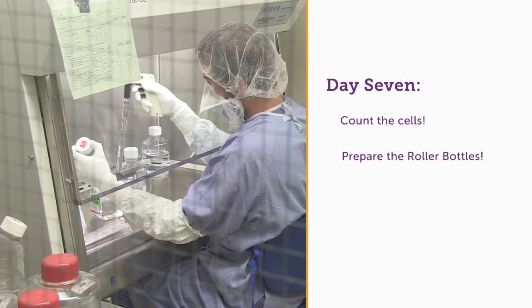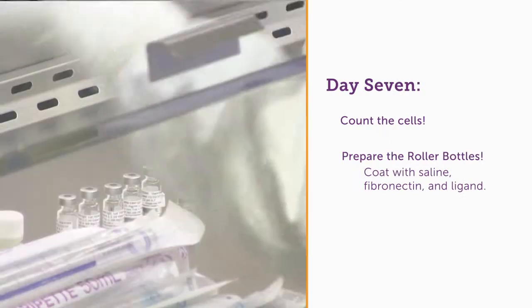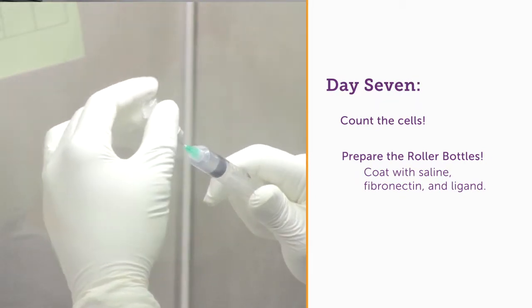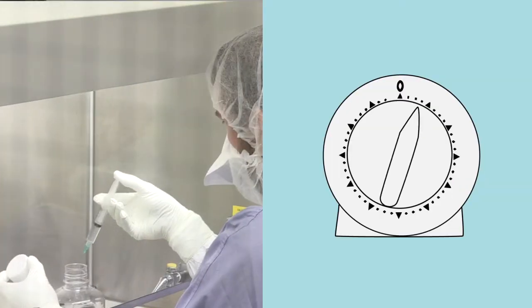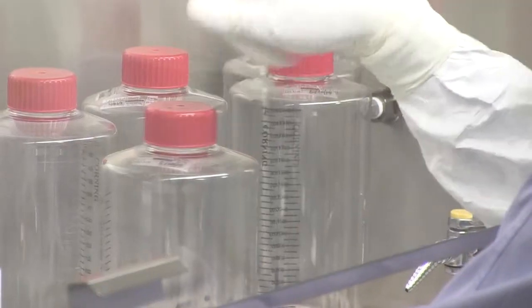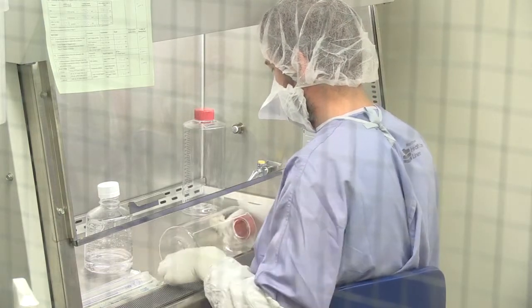We use a combination of saline, fibronectin — which is a very sticky protein — and then our special ligand protein, which is what actually signals the stem cells to help stay stem cells. We have to coat those bottles and let them incubate for two hours, giving time for the protein to stick to the plastic. Then when we're done we have to rinse it out, get rid of the coating solution, and rinse out our bottles before we put our cells in there.